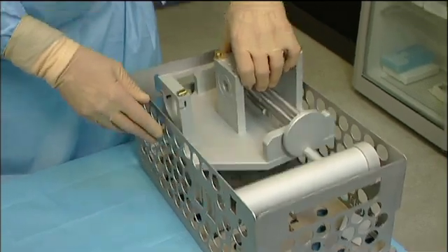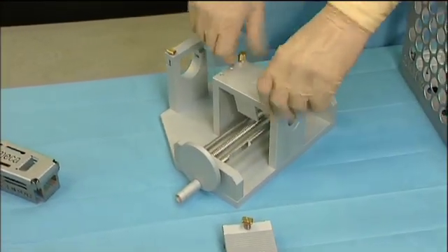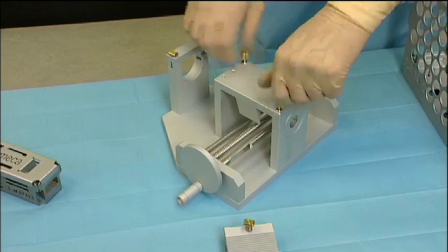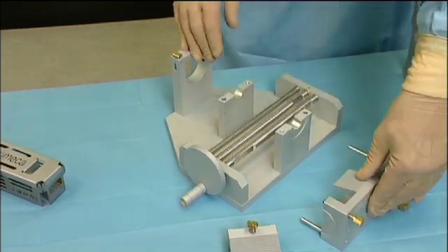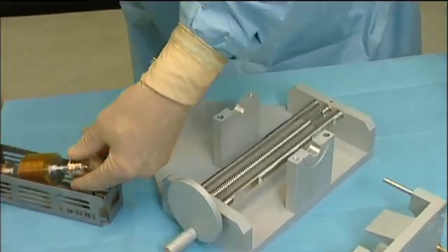Mostly the blades axis is kept in the machine during cleaning and sterilization to prevent any damage of the blades. However, an extra autoclave case can be used to clean and sterilize the blades axis separately if desired.